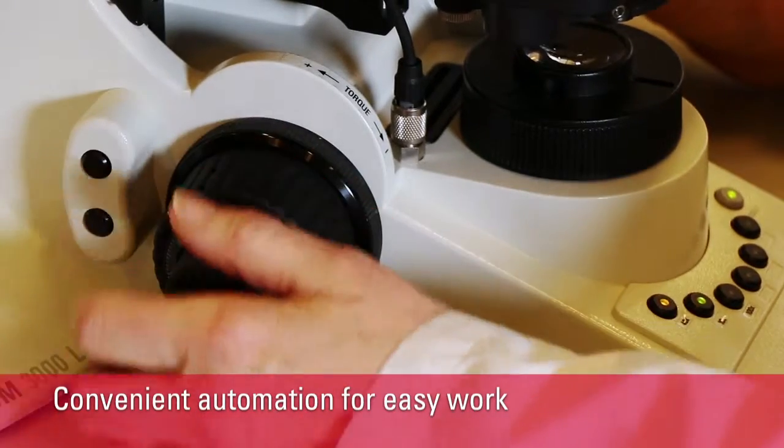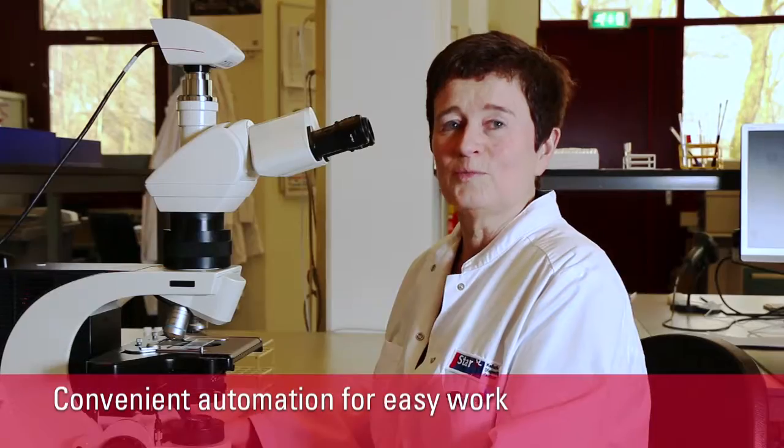The automatic functions like the movement of the objectives makes my work easier and also more fun to do.